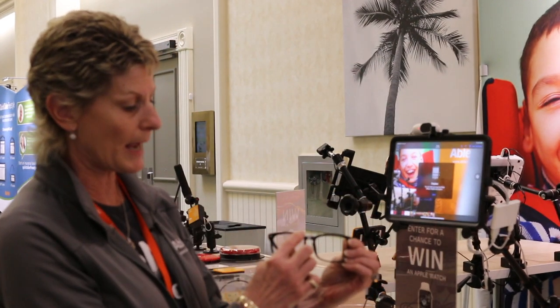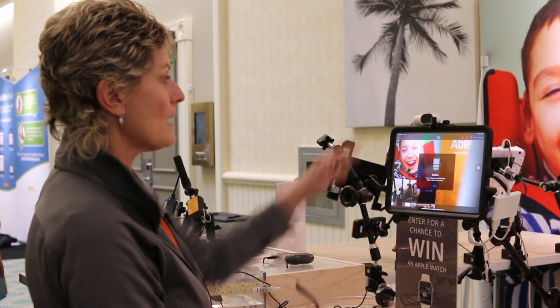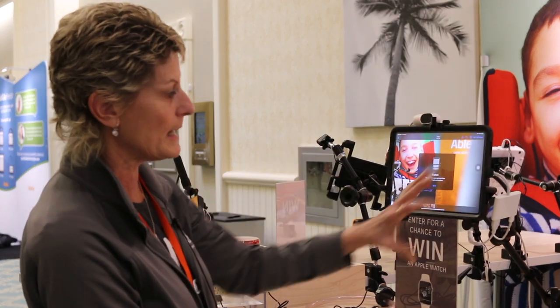So it's really about being able to have this dot being recognized by the TRACKER Pro and really gaining you full access to the iPad. So that's your tech tip for this week. My name is Brian Norton with the INDATA Project at Easterseals Crossroads.